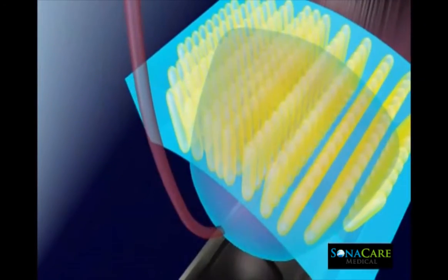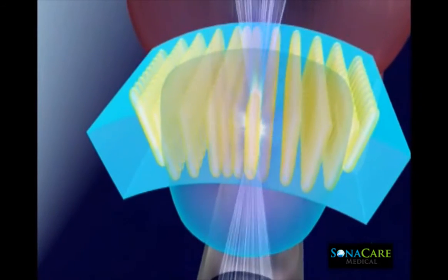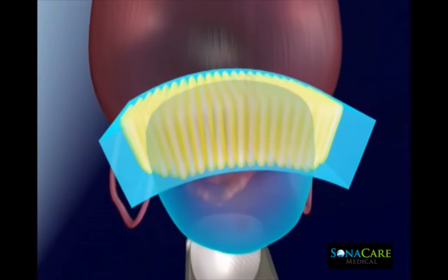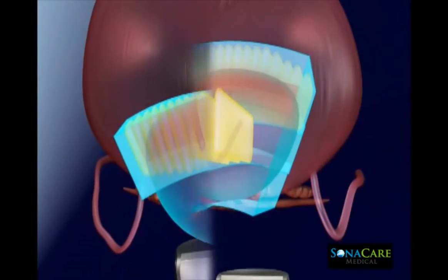With each yellow lesion being comparable in size to a grain of rice, the on-screen simulation represents a whole gland ablation.